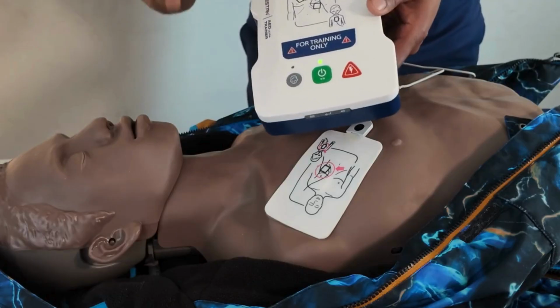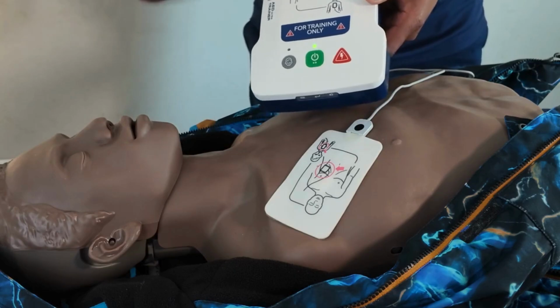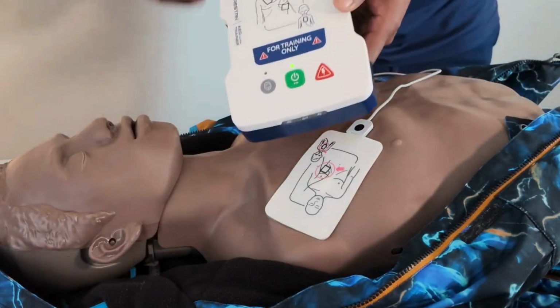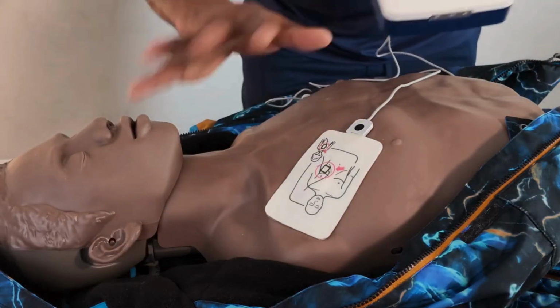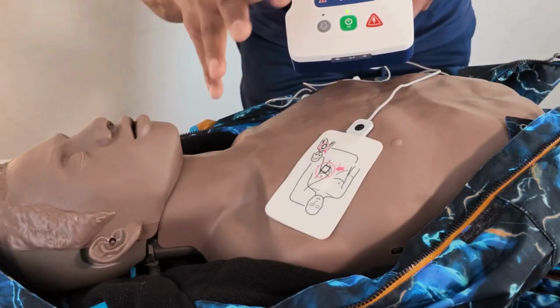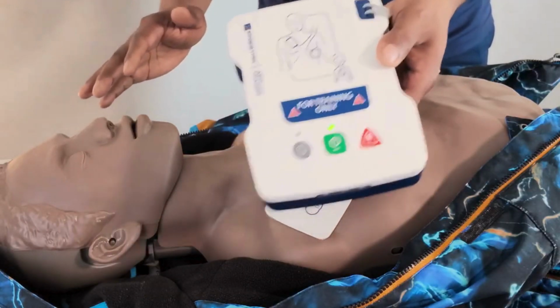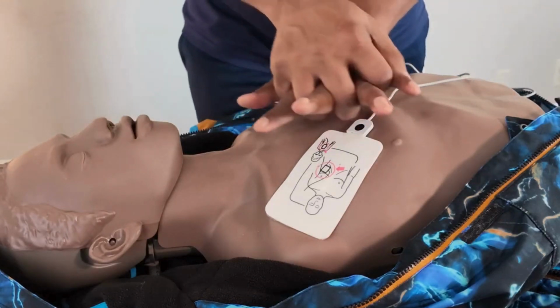You can hear the beep of the AED, indicating how to follow the rhythm before doing CPR. After we have put the pad, upper right, lower left, you can hear the rhythm. Tap, tap, tap, tap. Let me do a few for you, but I have a complete video about how to do CPR and AED. This is just to show you how to apply the pad and the basic knowledge of this. This is not the main video, but let me show you a bit by following the rhythm.